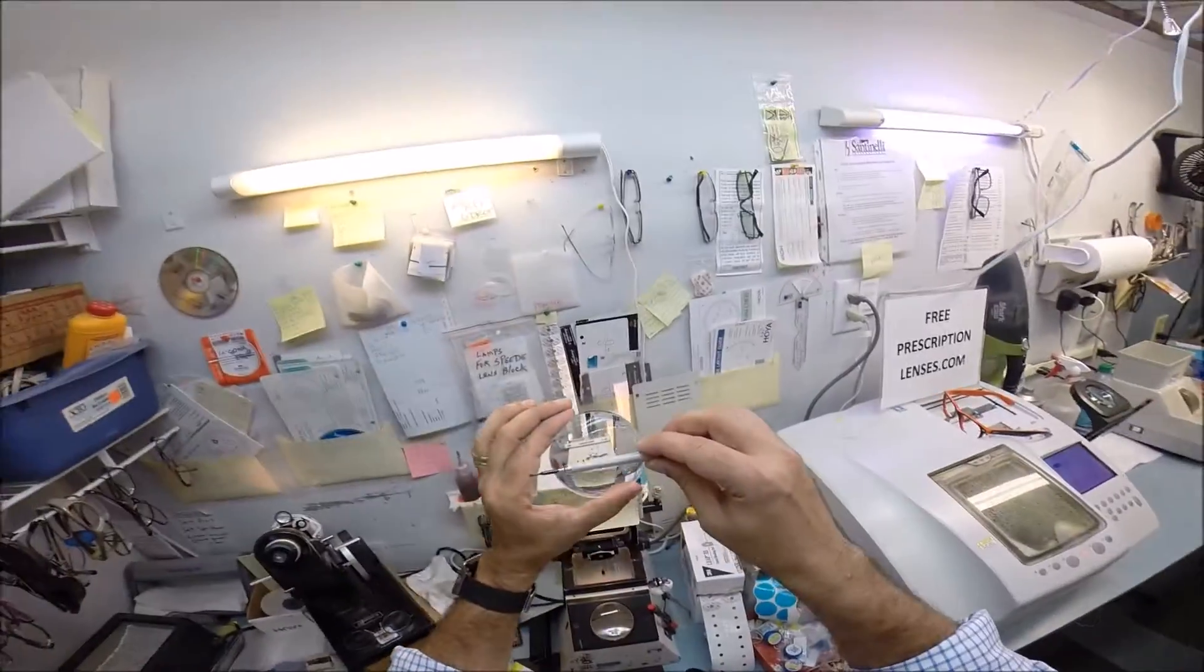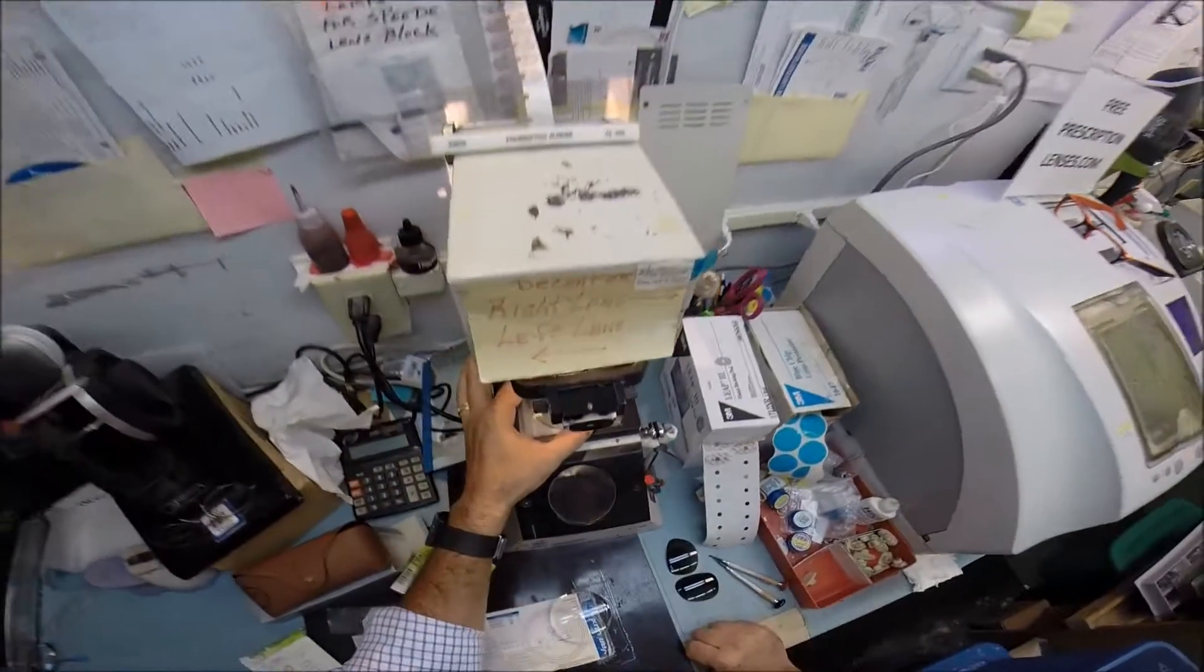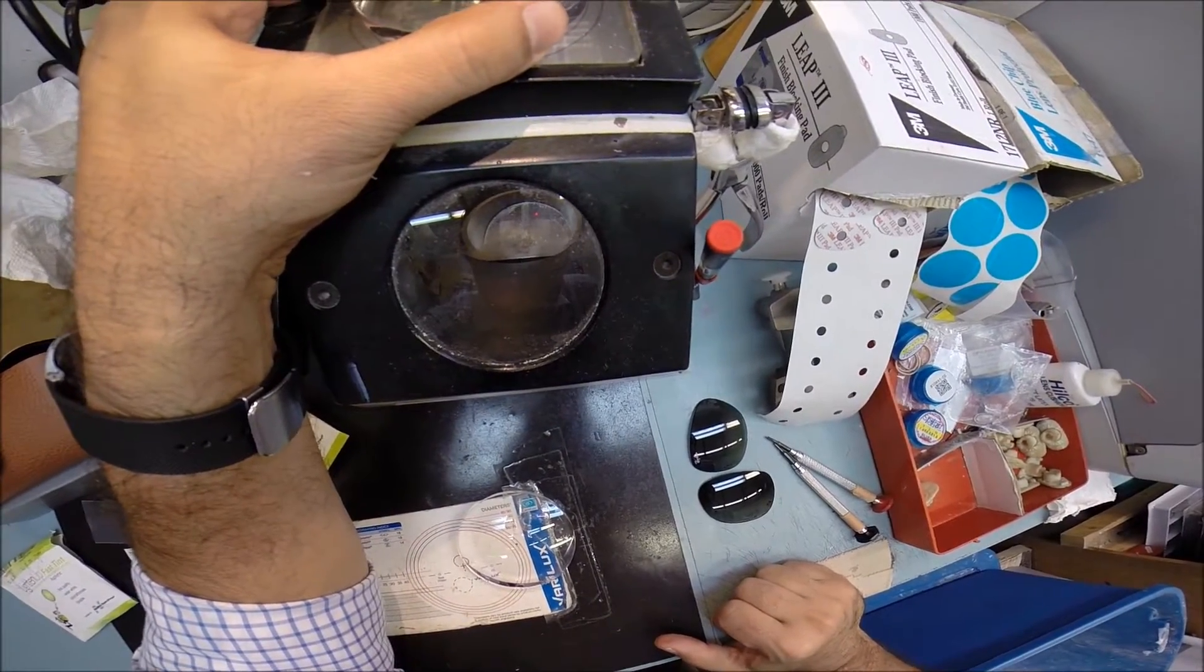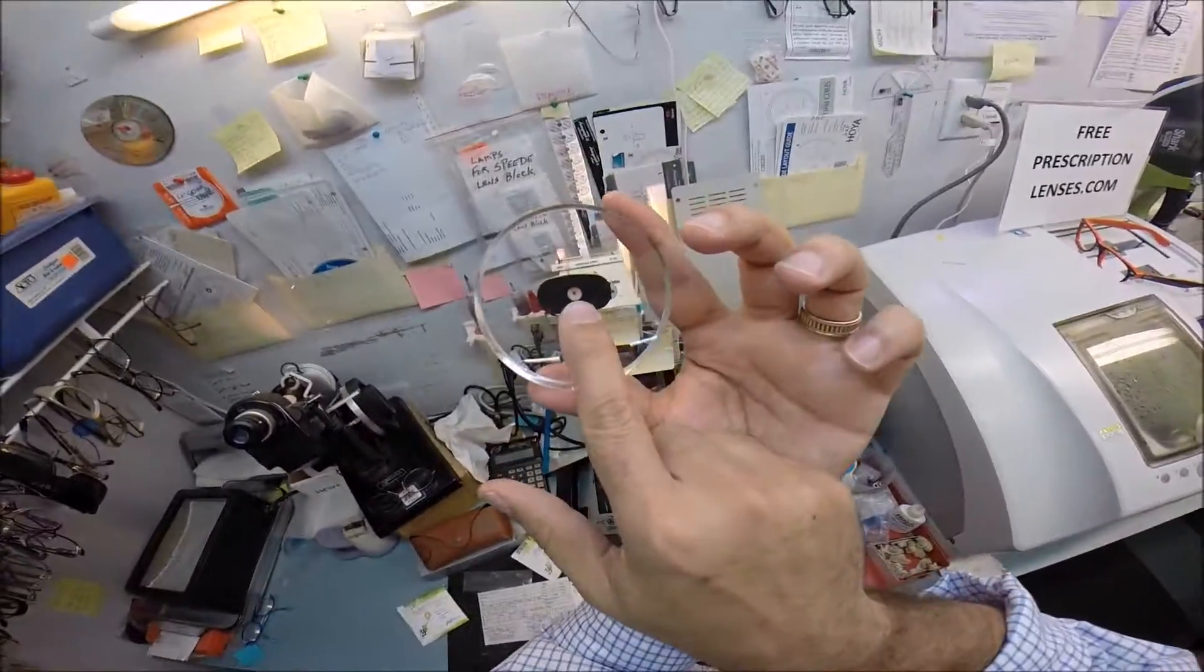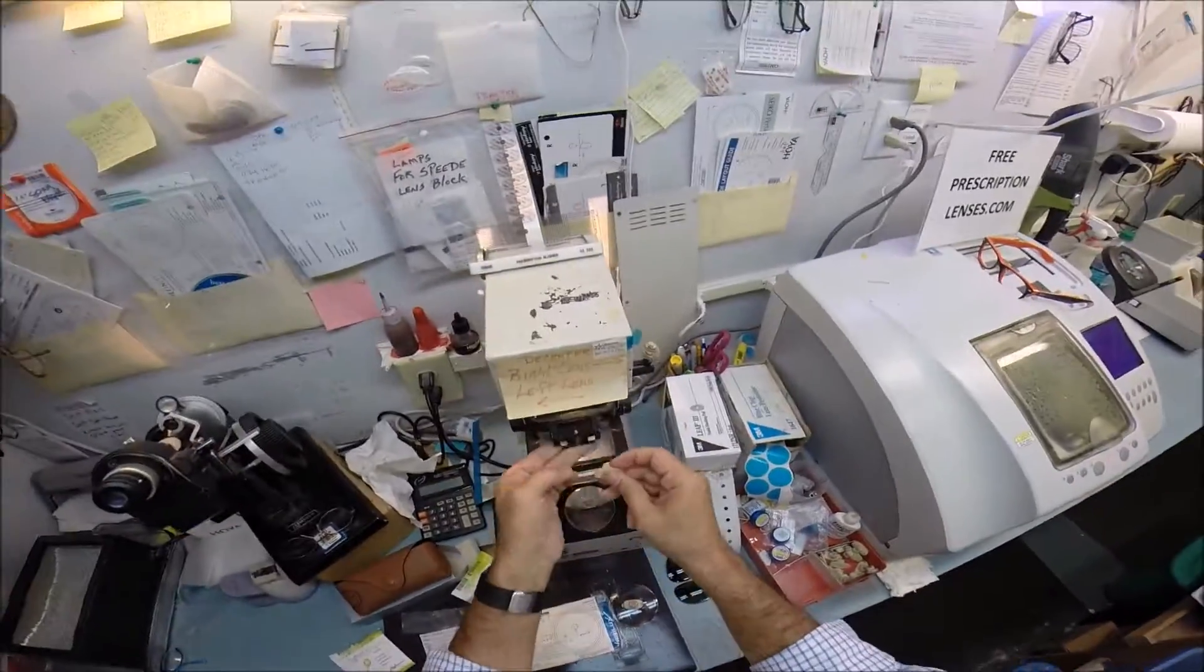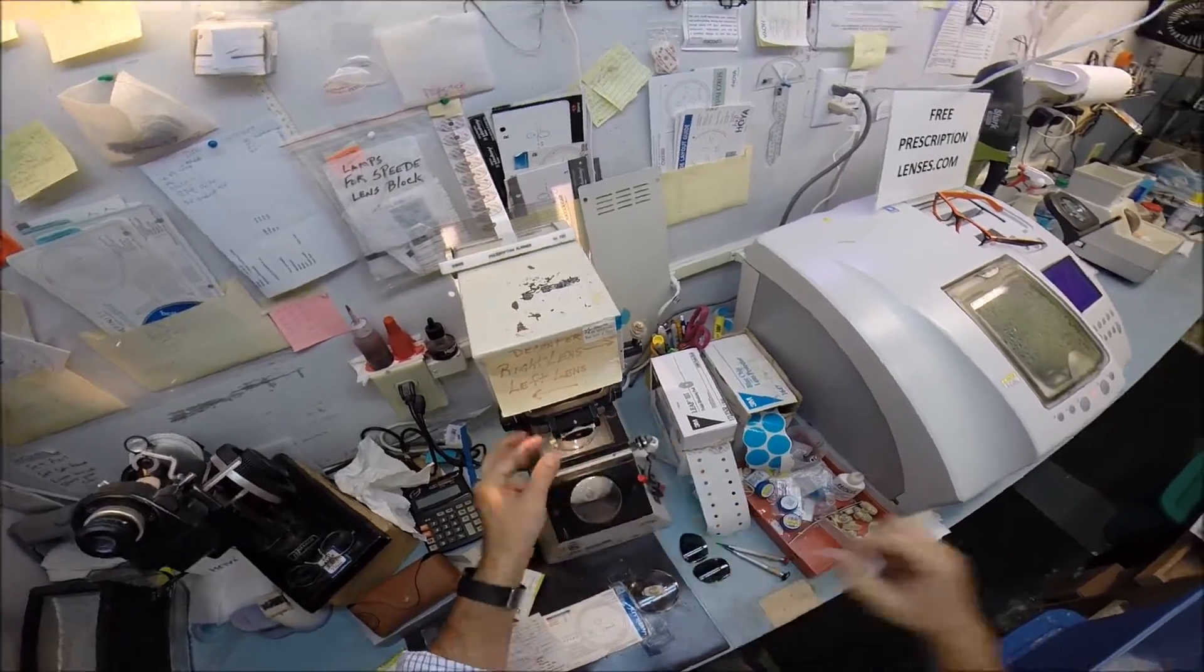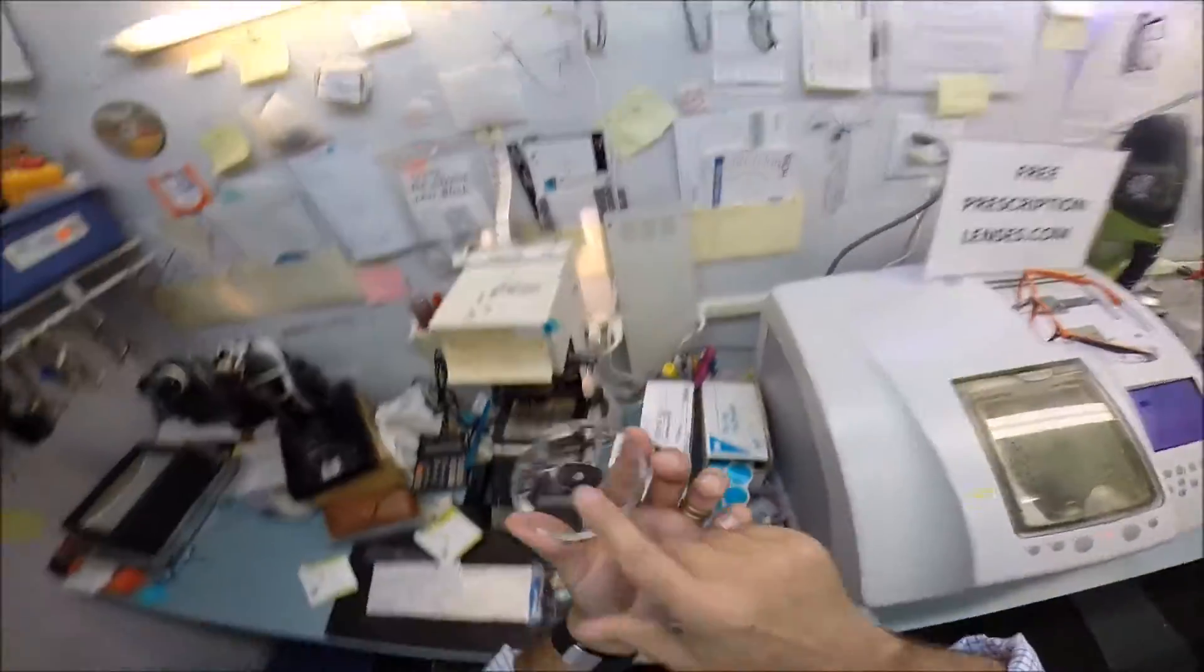And what I'm looking at is essentially just like the crosshairs of a scope. I have a vertical meridian and a horizontal one. And I've put those three dots on there because they need to... This has to be rotated just perfectly to fit into your frame. So I'm going to put those three dots on the horizontal meridian. And then the vertical one is going to go straight through your optical center of the lens. Let me do the same thing now for your left eye.